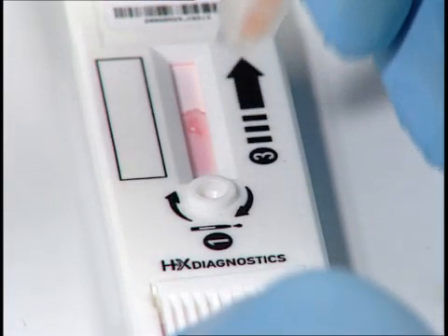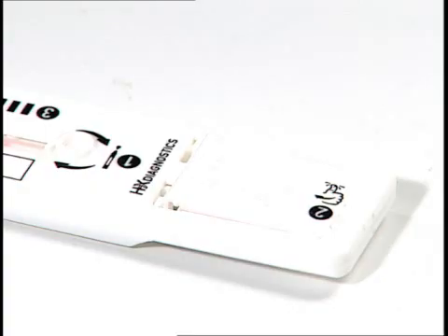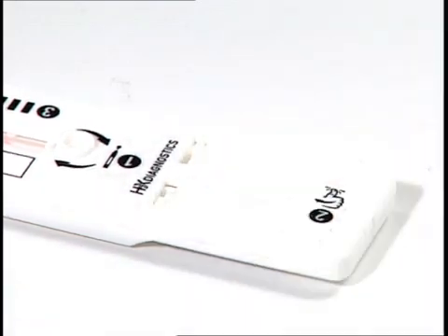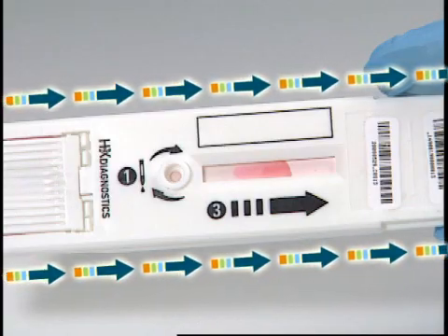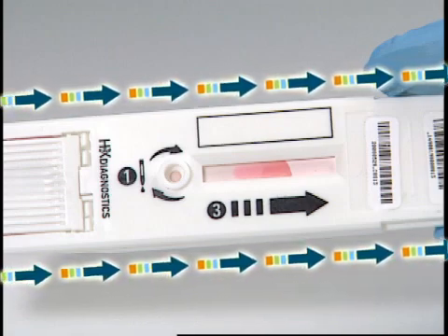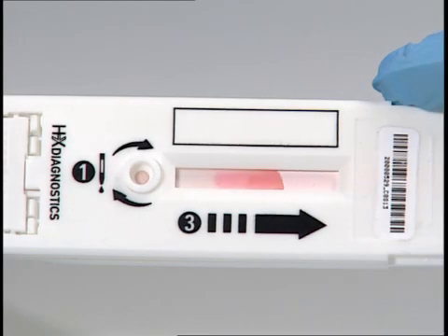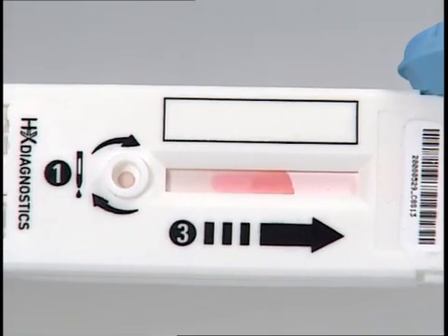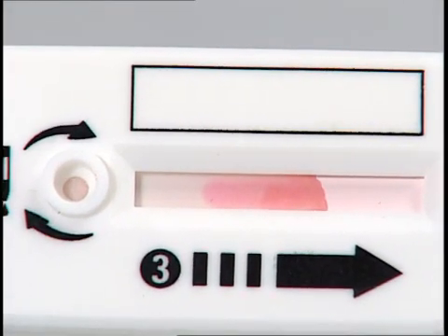Remove the sample reagent assembly from the cartridge. Now press the cartridge button until it clicks. This releases the wash buffer and initiates the separation of the antigen-antibody complexes. The labeled antigen-antibody complexes will flow laterally along the cartridge.